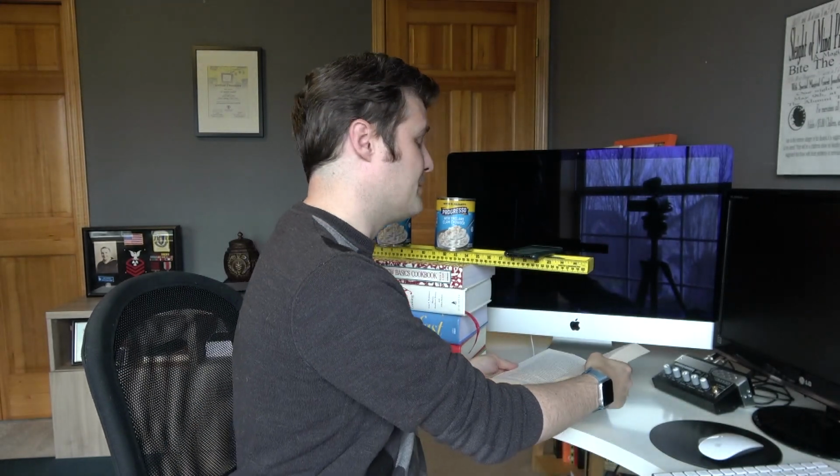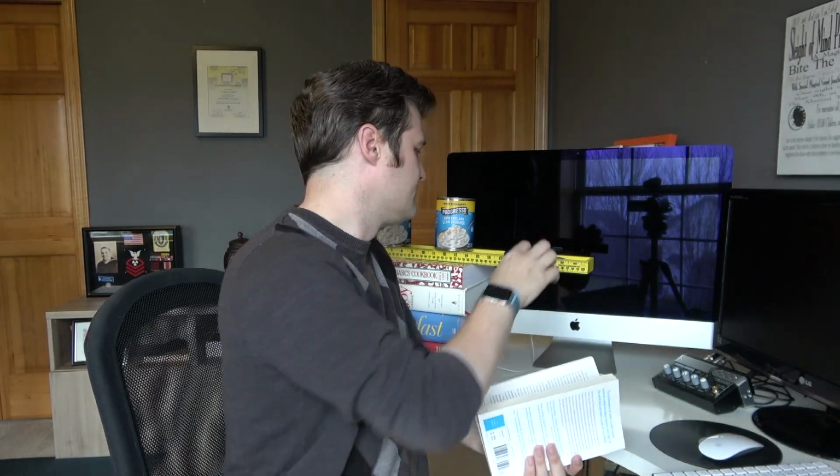It's rather quick. But if I want to read the whole page of a book, if the book's moving at all or adjusting, that can cause an issue. And I also want to make sure I catch the whole page, not just part of it when I line it up underneath. "How Not to Be Wrong." It can be a little bit tough to use. "You can tell a similar story about the North Carolina lotteries."